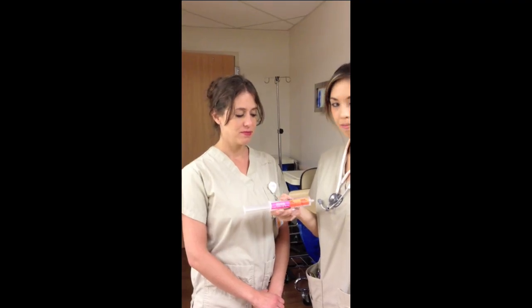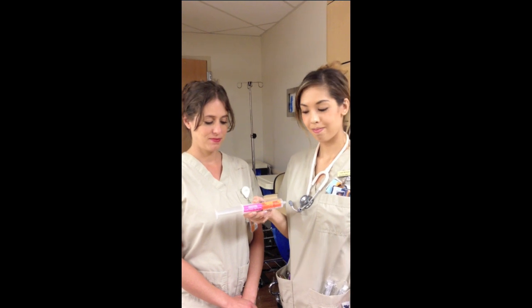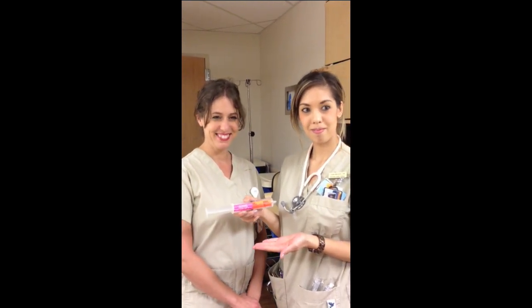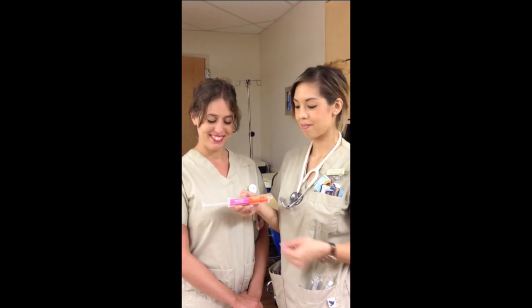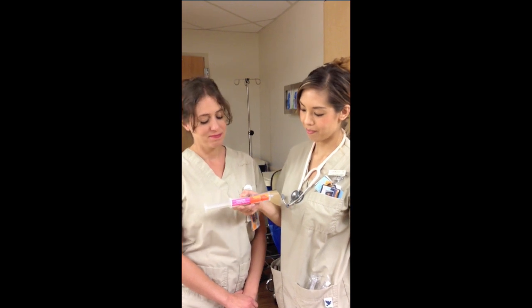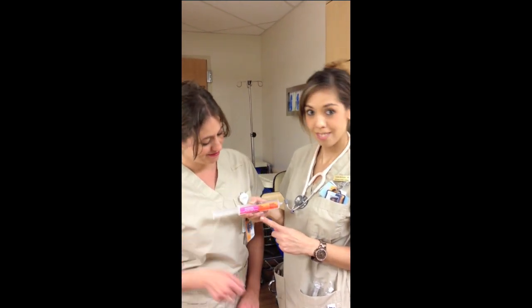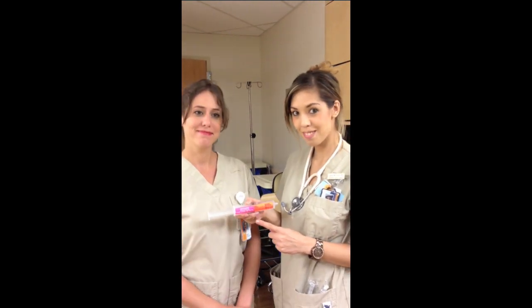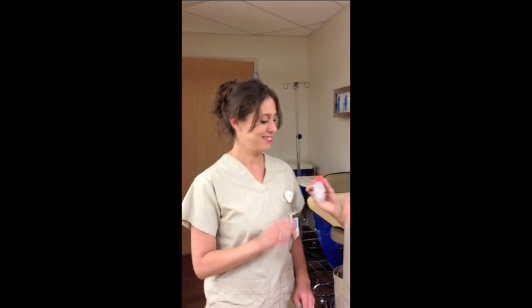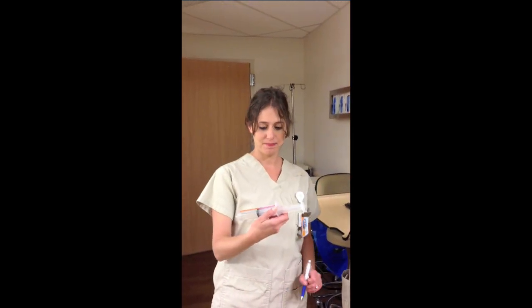Prepare the medication that you will be infusing into the PCA. Take note of the fluorescent non-standard concentration sticker located on the syringe. Make sure to have a secondary nurse co-sign to verify the dose of the drug and the concentration.